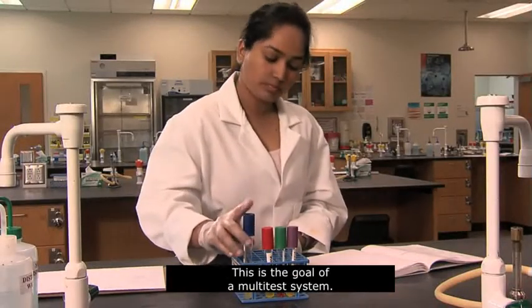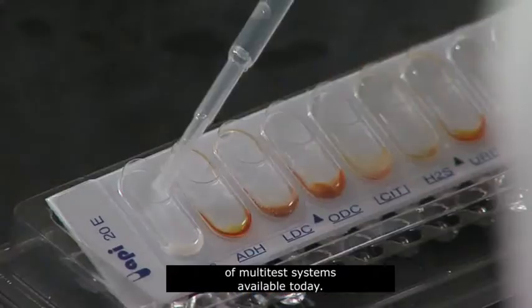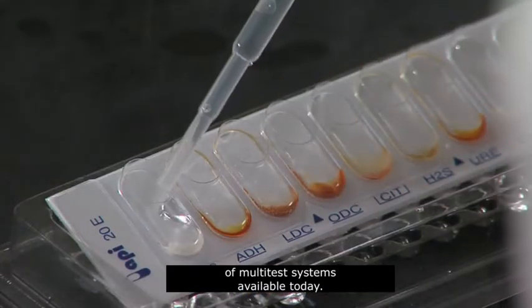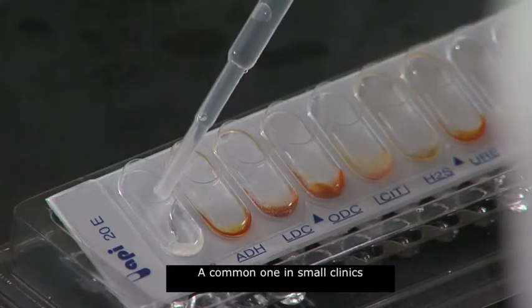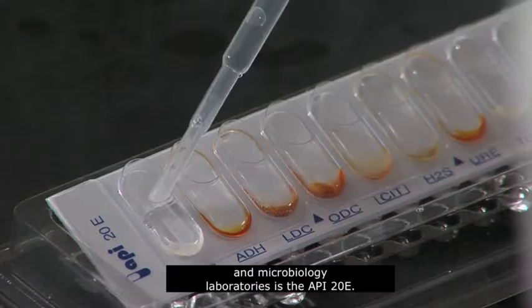This is the goal of a multitest system. There are many types of multitest systems available today. A common one in small clinics and microbiology laboratories is the API-20E.